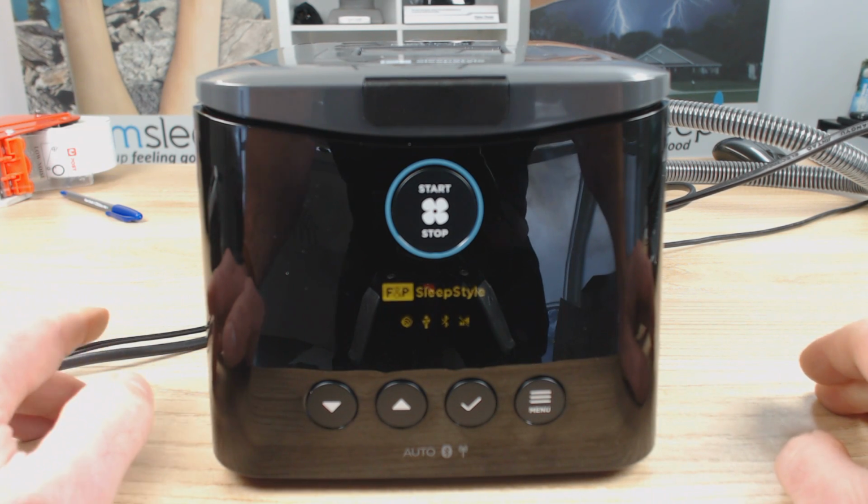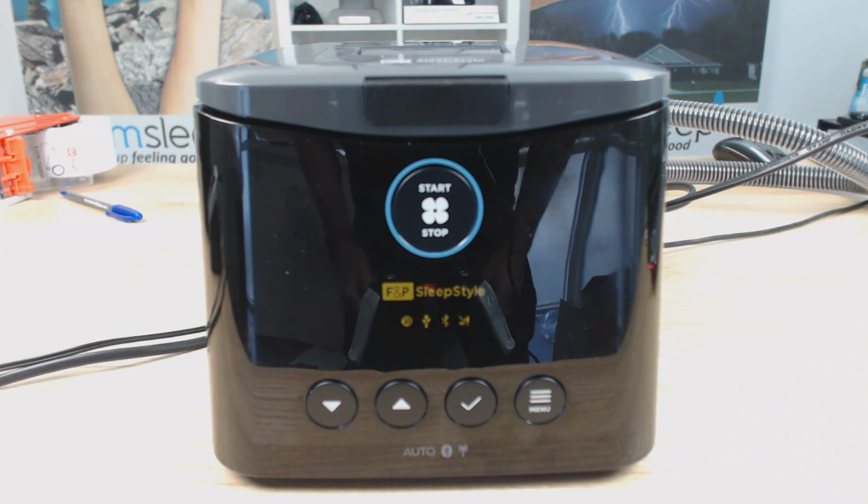Now you have all the knowledge that I have. You know how to operate the machine, you know how to change the patient settings, and now you have access to the clinical menu where you can, if you require it, get access to the pressure settings and adjust them, as long as you have the knowledge and understanding of the basic parameters around that. And maybe even consult your CPAP therapist or sleep physician or whoever if you're going to do that as well. But it just might save you, especially if you're in a rural scenario where the nearest clinic's an hour away, that long drive.